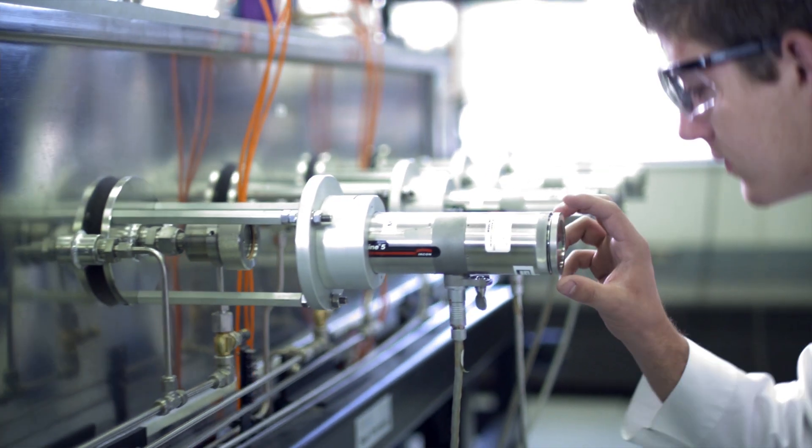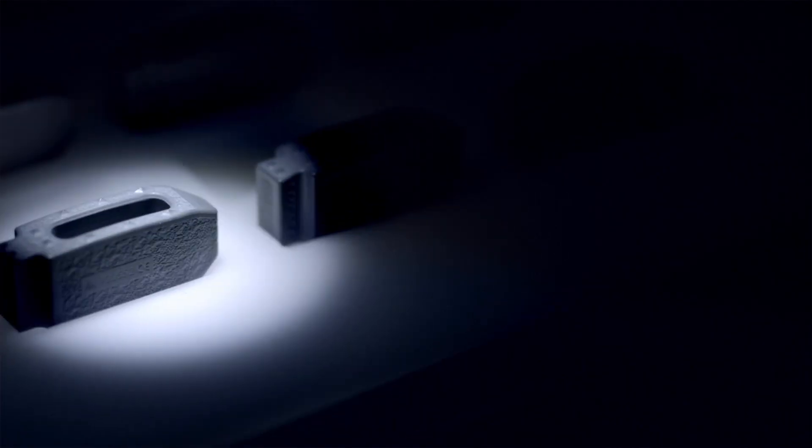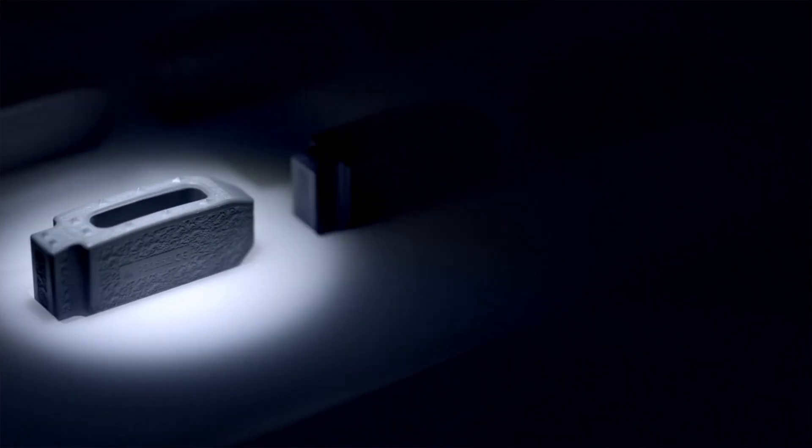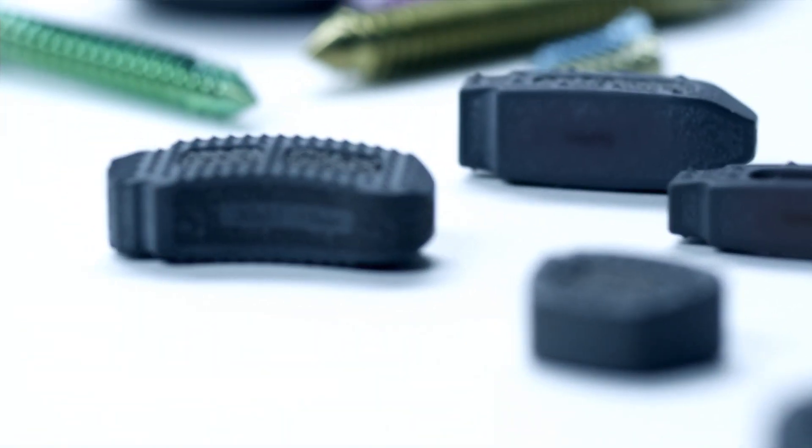Amedica is the only company in the world with FDA and European Union clearance to use silicon nitride in medical applications. The company's microcomposite has FDA clearance for use as an interbody fusion device. It provides the foundation for Amedica's spinal products including spacers, fusion hardware, biologics and minimally invasive solutions.